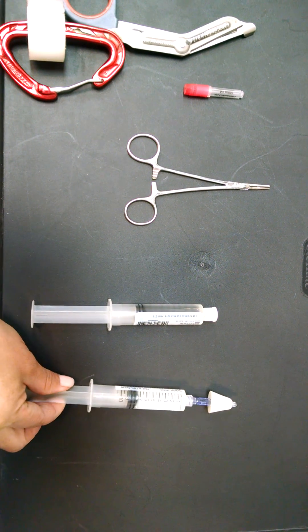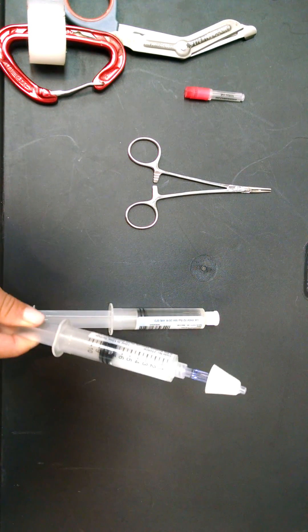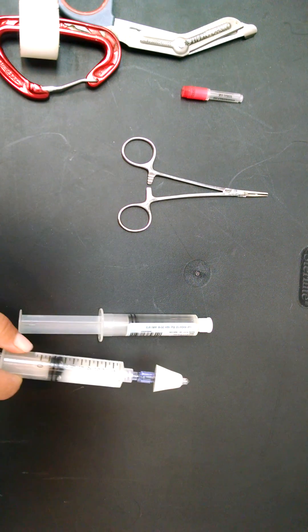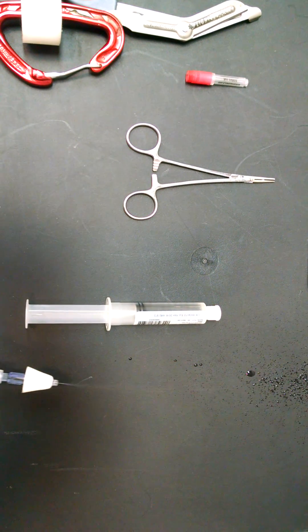So what we're going to do, this is a MAD device right here. You can see it's able to atomize the medication.